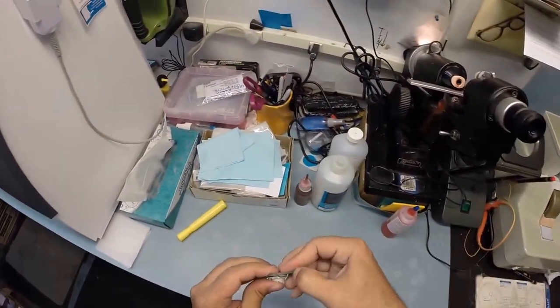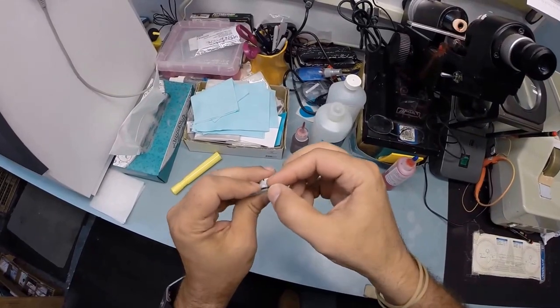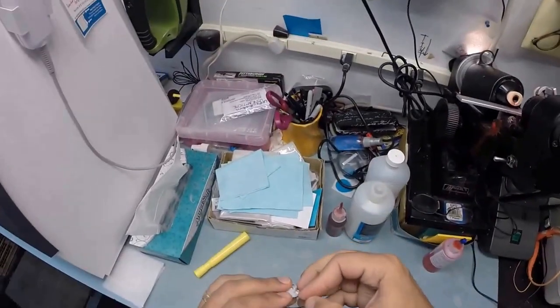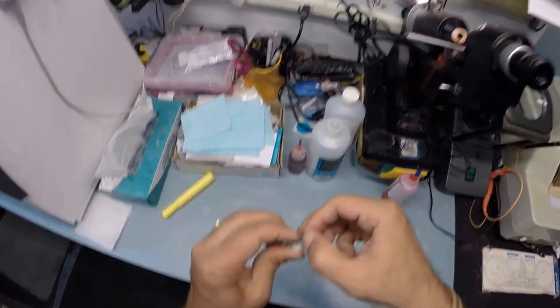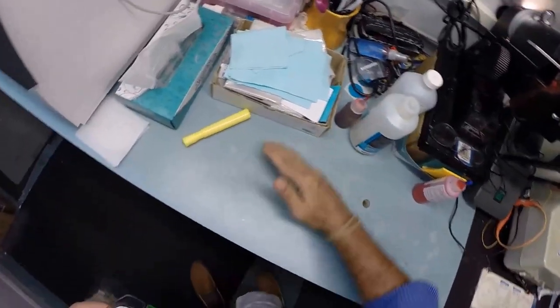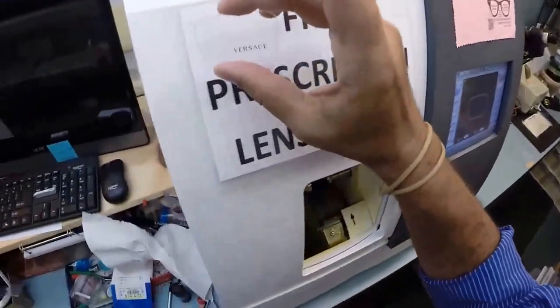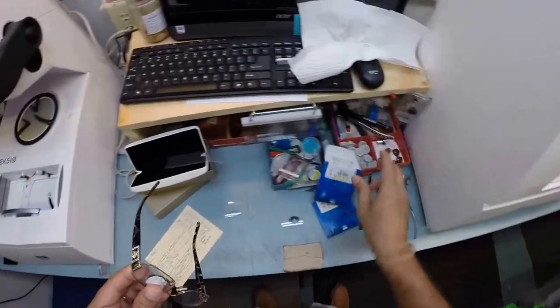Alright, so let's go ahead and dry your lens off. Use my thumbnail to scrape all that optical debris off the edge of your lens. It is called Swarf. Do you see that? Let's remove all the Swarf. May the Swarf be with you. Actually it won't be with you, I'm going to peel it off. I love it when it comes off in one big long piece. Like in your dryer, cleaning all the lint off the lint trap. I love it when it comes off in one piece. That just makes my day. Although I have not done the laundry in years. Thanks, honey, I'm talking about you. So again, once it's all onto the counter in one pile, I wipe it on the floor. The reason why I do that is it fools people. When people come over and they see a dirty floor, they think I've been working.